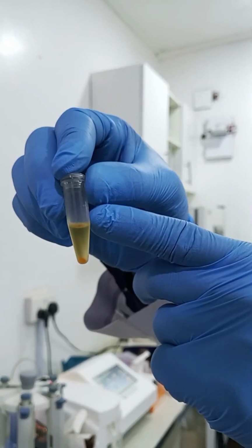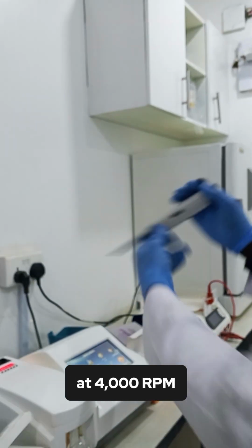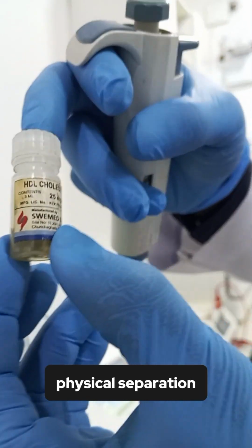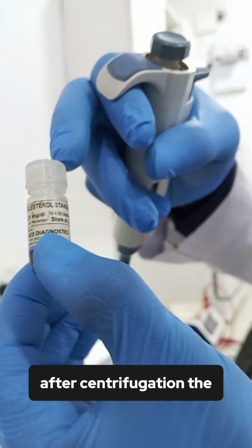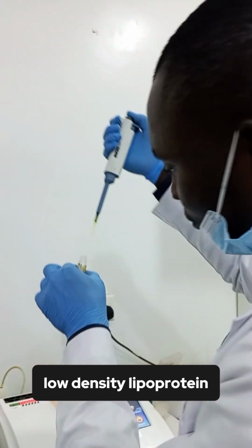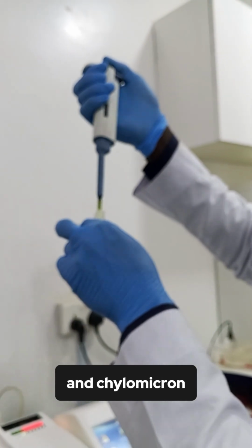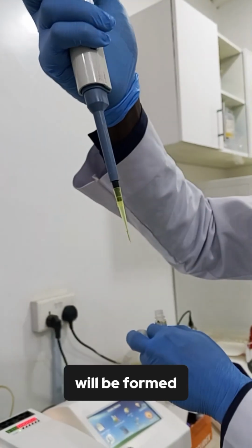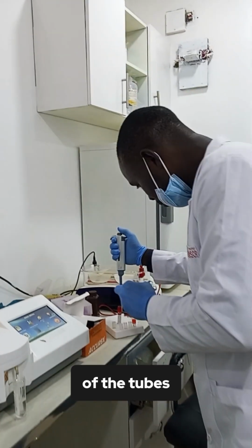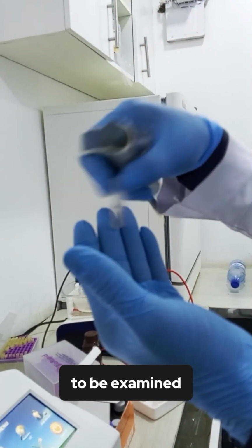Now, why do we centrifuge at 4,000 rpm for 15 minutes? Centrifugation does the physical separation. After centrifugation, the precipitated low density lipoprotein cholesterol and very low density lipoprotein cholesterol and chylomicron will be formed at the bottom of the tubes, leaving only the HDL as supernatant to be examined.